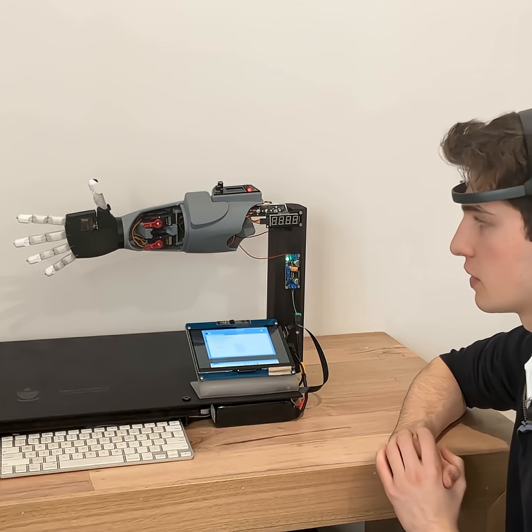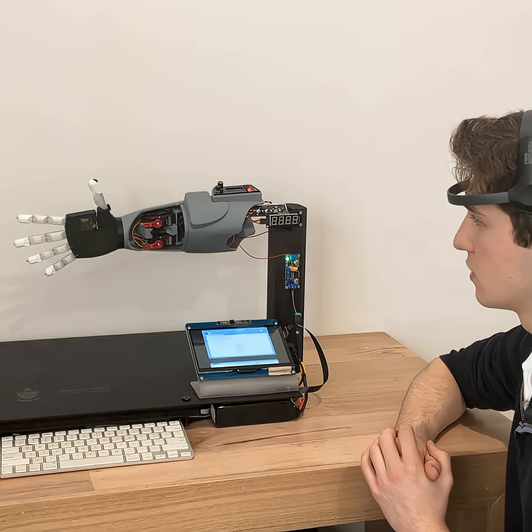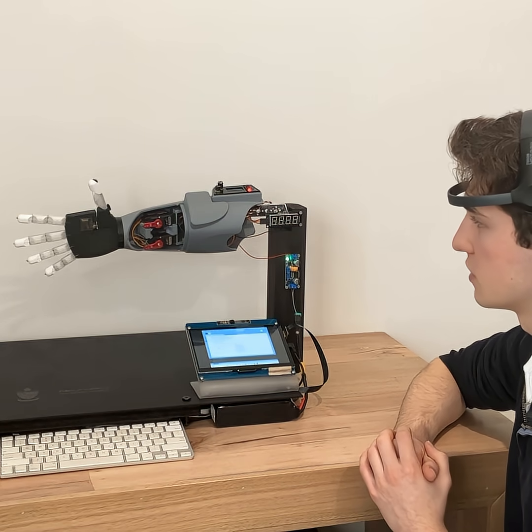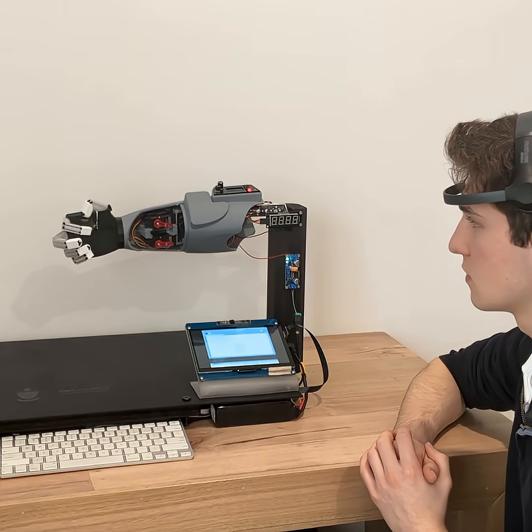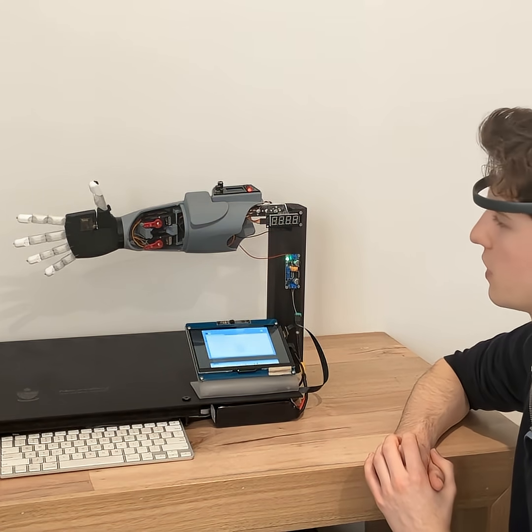I'm going to try opening, close it and open it as fast as I can now. Three, two, one. And now I'll just try to keep it closed for as long as I can. There. Alright, so that worked quite well.